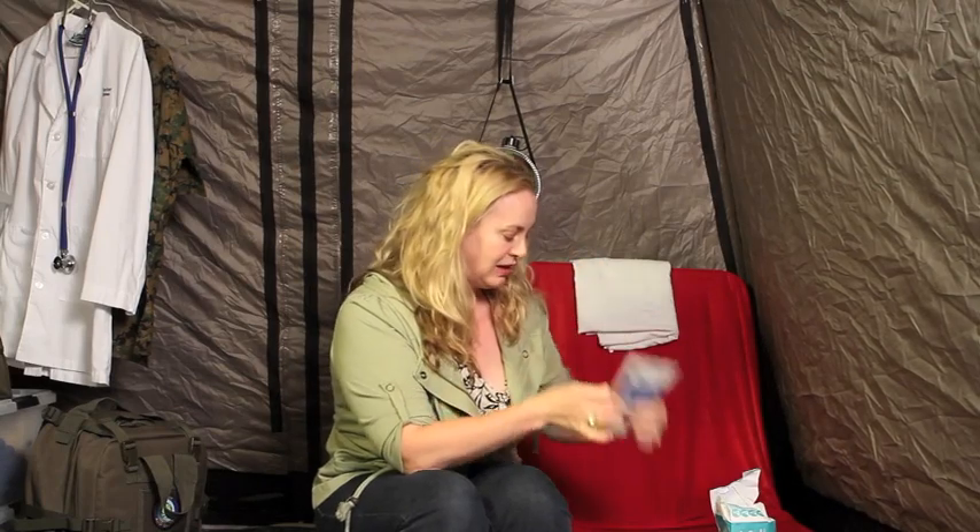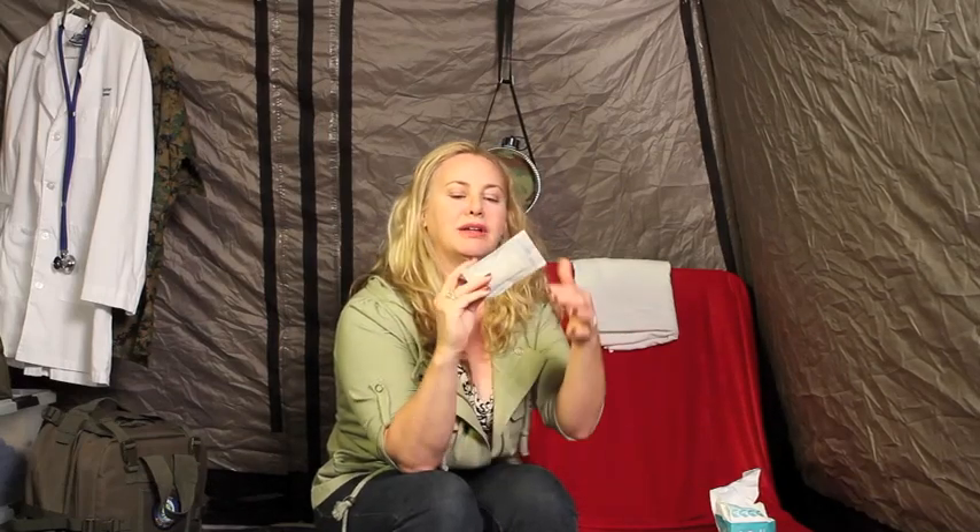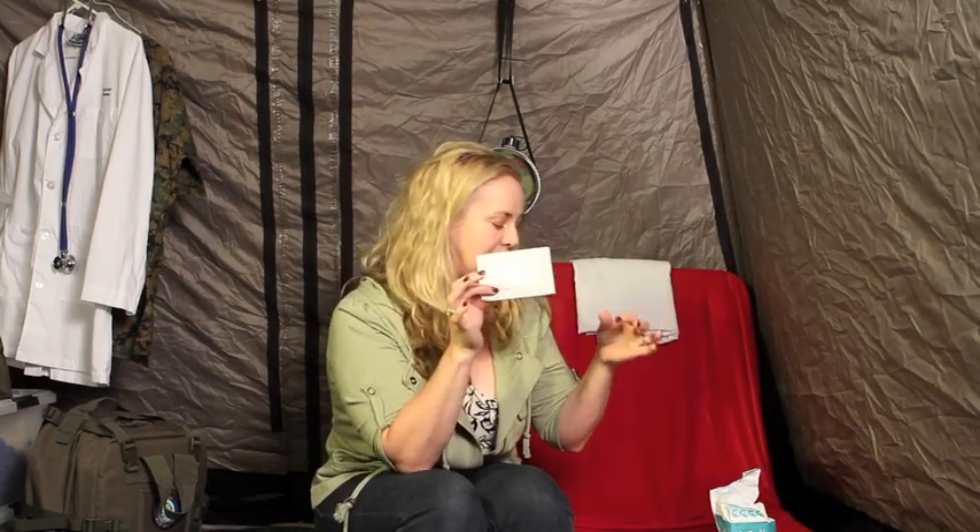What about sizes? This is what's called a 4x4 — very simply, it's 4 inches by 4 inches. We also have options of 2x2s. There are several different options for sterile and non-sterile gauze, but those are typically the sizes you're going to find. You also have eye pads, which come in a special shape so that it fits exactly around the outside of the eye socket and can be placed on very easily.